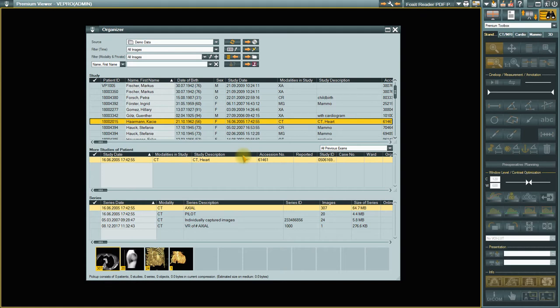For example, you can create a freely settable layout for each image group, such as CT, CR, or MR. This means that the display grid, contrast, brightness, etc., for a series will always be displayed based on the same pattern.